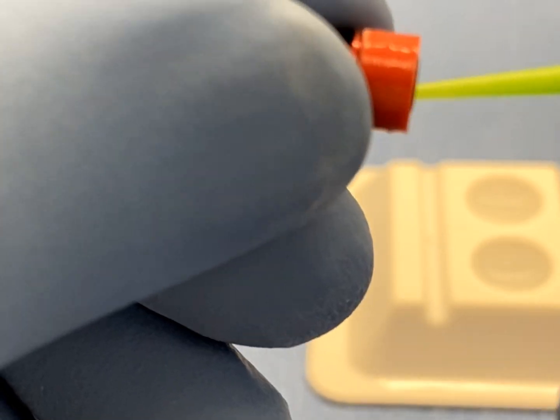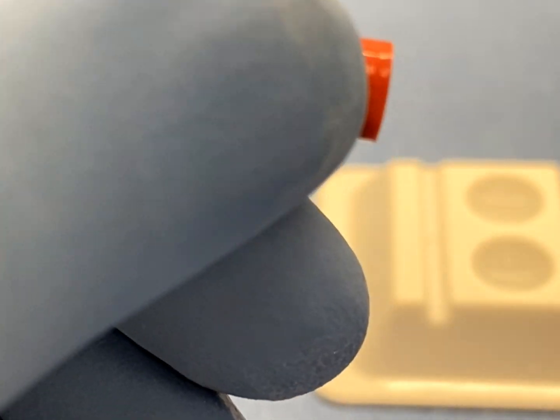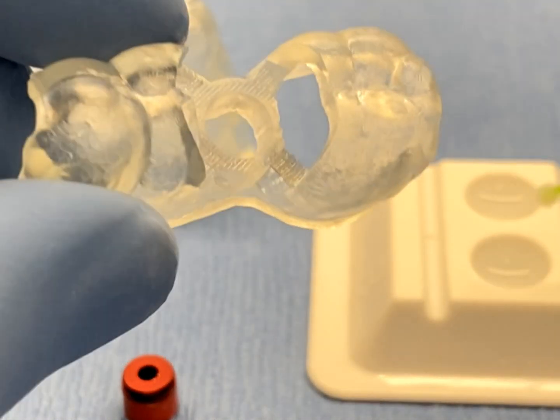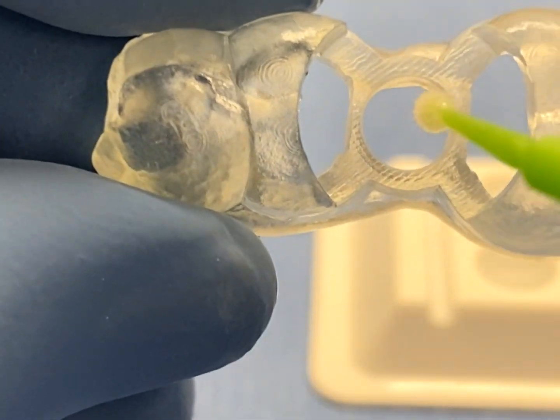Now, place a light film of dental or medical grade adhesive on the outer surface of the surgical ring and on the inner surface of the guide tubes.